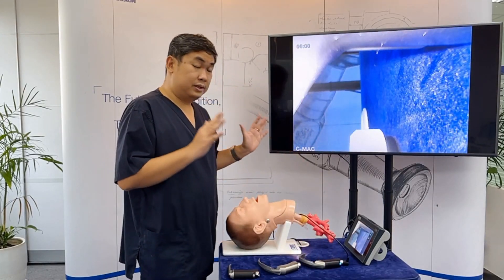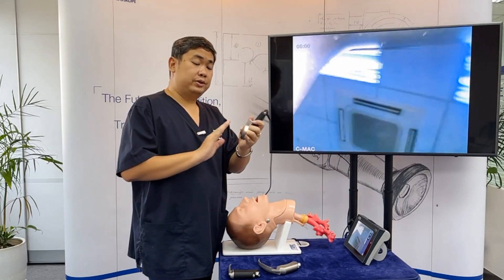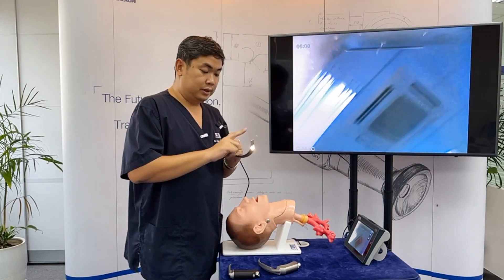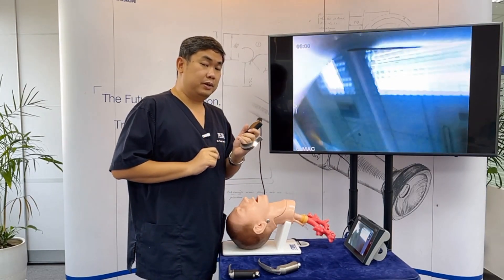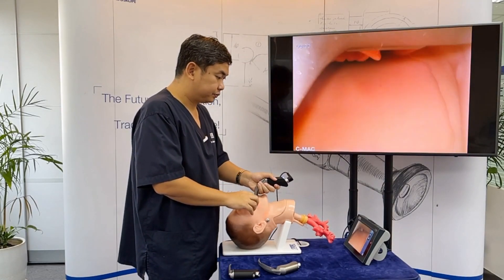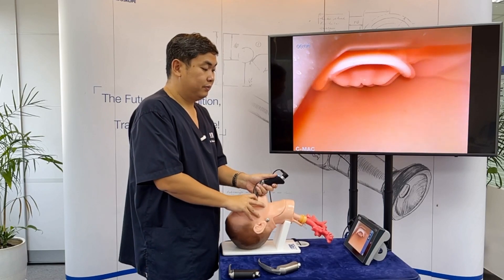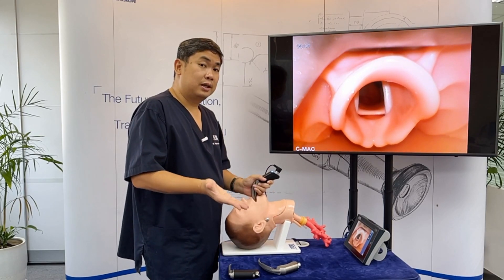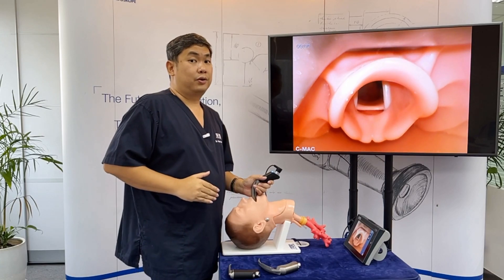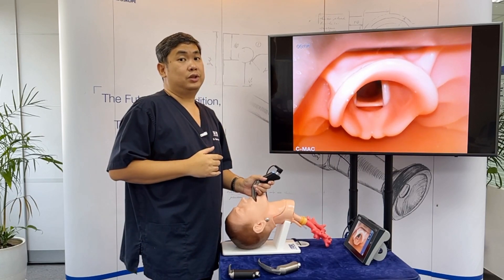What's the difference between all three? When you're using curved blades, you position the tip of the blade at the vallecula. When you press at the vallecula, the epiglottis moves up and you can see the vocal cords. Then you can proceed to intubation.